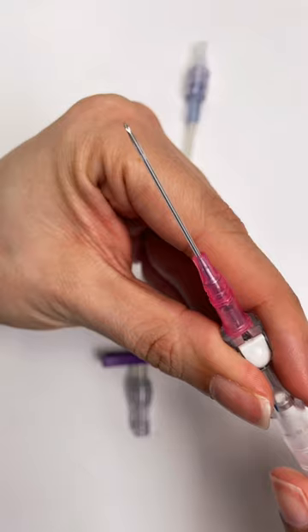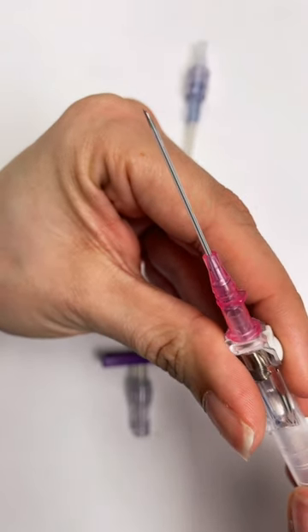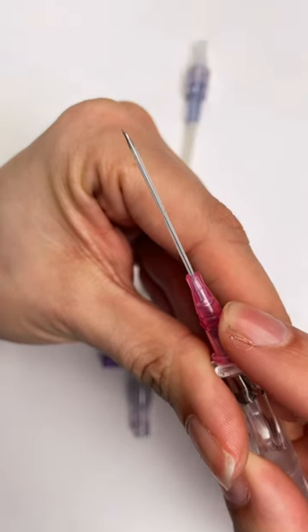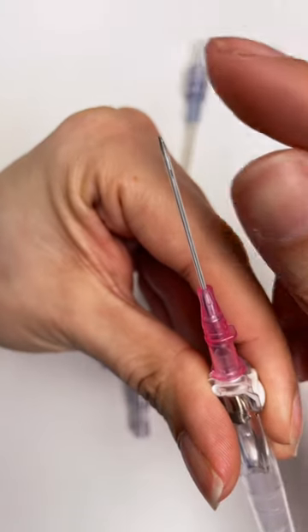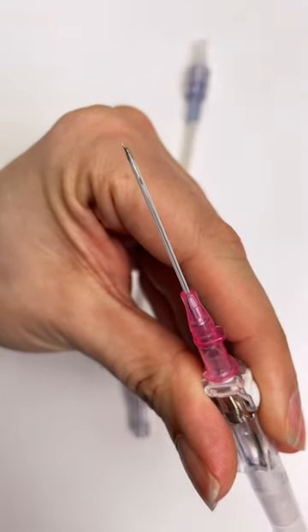So first up, let's just get familiar with our equipment. This is the IV catheter and needle. And as you can see, the catheter here sits on top of the needle, but look how far back it is before it actually gets off of the needle. The needle tip is here, but the IV catheter starts all the way back there.